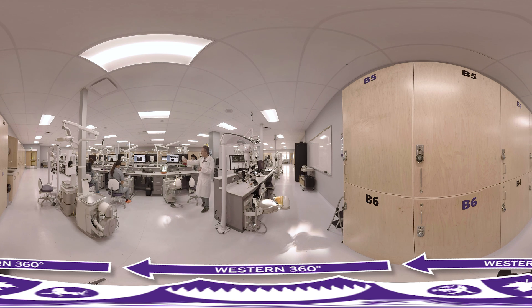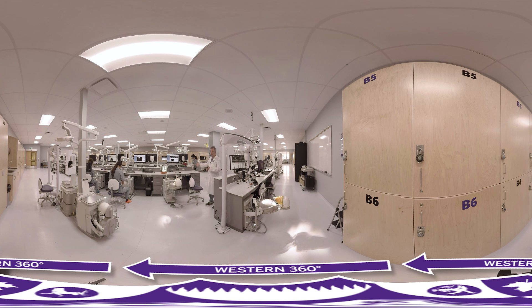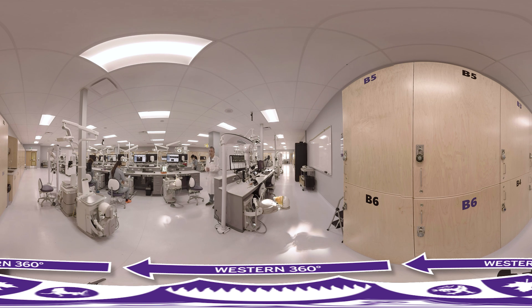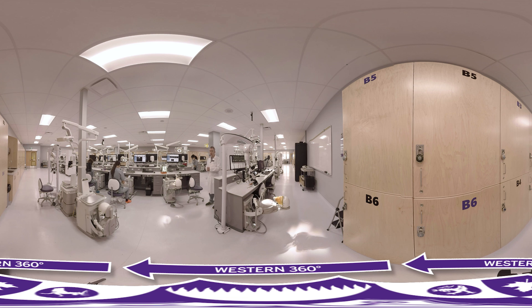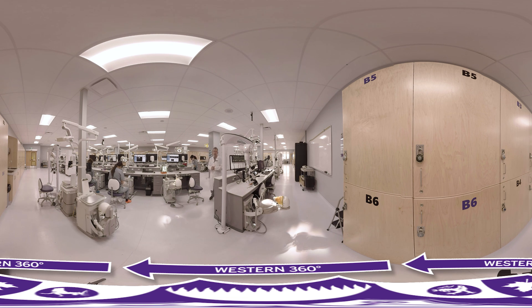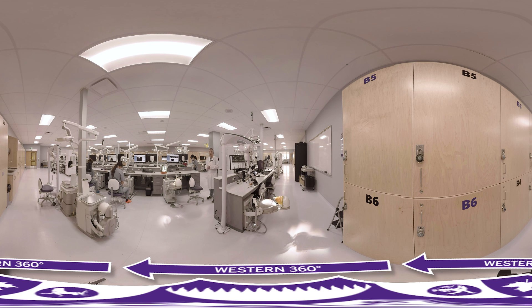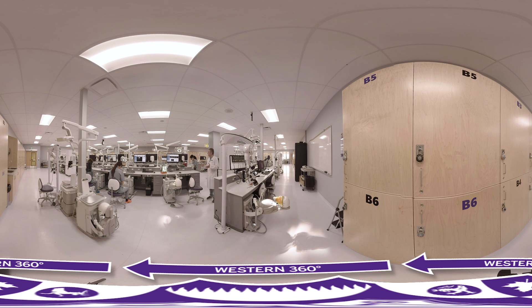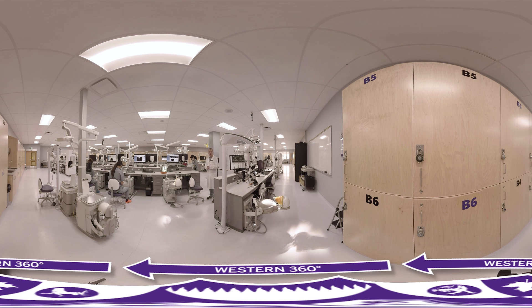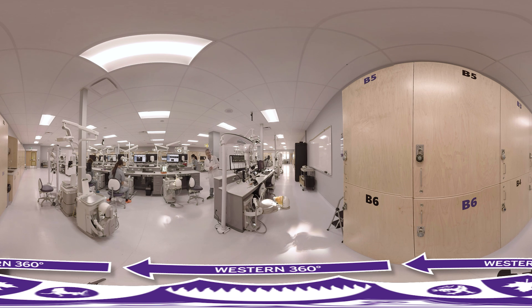We have, in total, 60 of these simulation units, and the entire simulation clinic is 5,000 square feet. As you can also see around the edge, we've got the student lockers, so it's really very convenient for the students to keep all their goods and chattels, and it saves an awful lot of time when it comes to running the class — we can get a lot more teaching done because of it. So that's our new simulation facilities. Thank you.